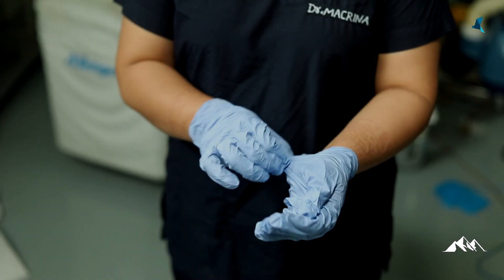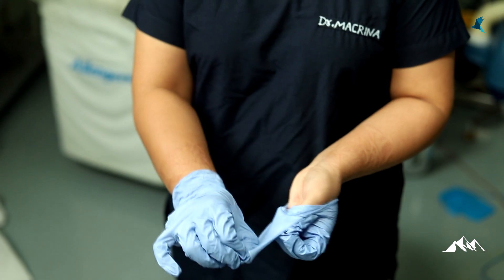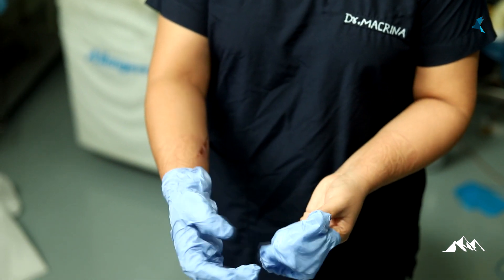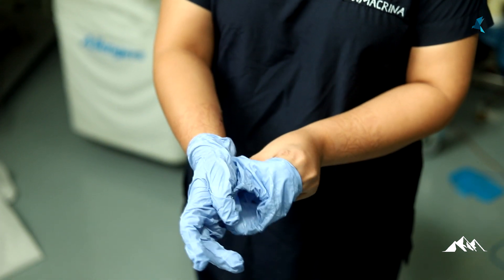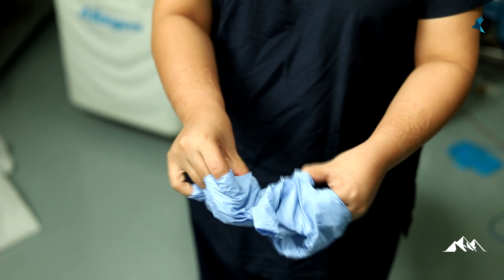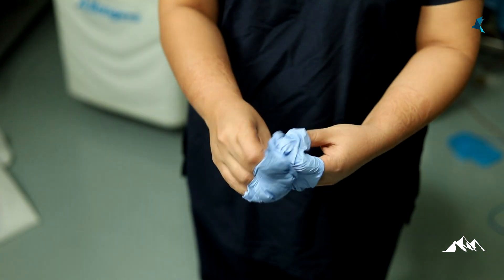Step 9: remove the second or inner gloves. The steps are the same as mentioned earlier — pinching at the palm-wrist level to get half-removed gloves and carefully removing fully by pinching on the inner side. This should be followed by hand hygiene with soap and water.